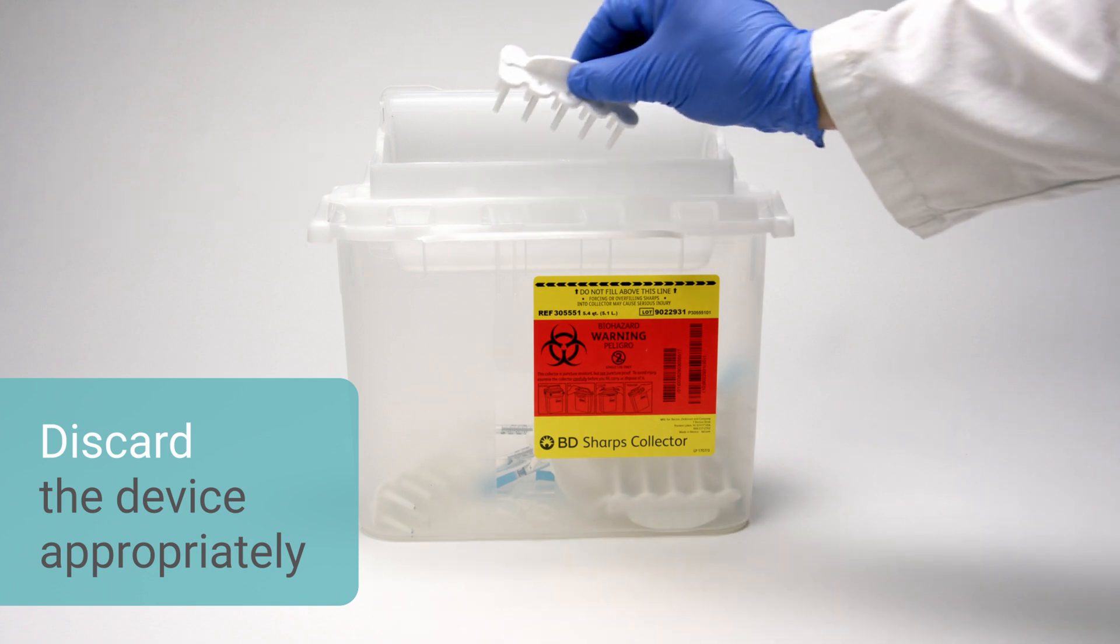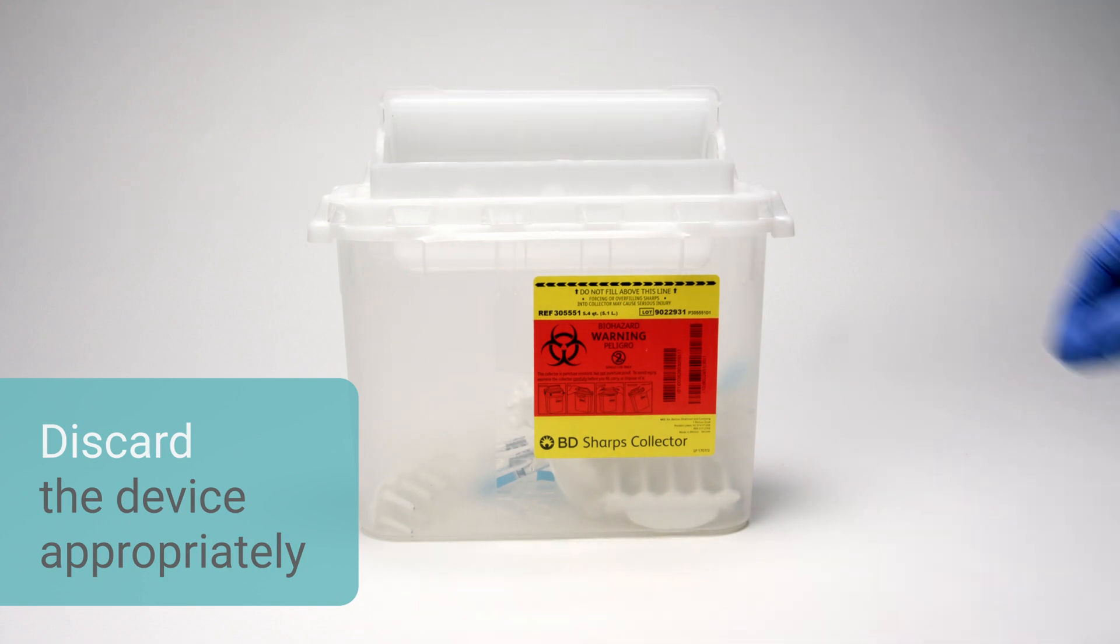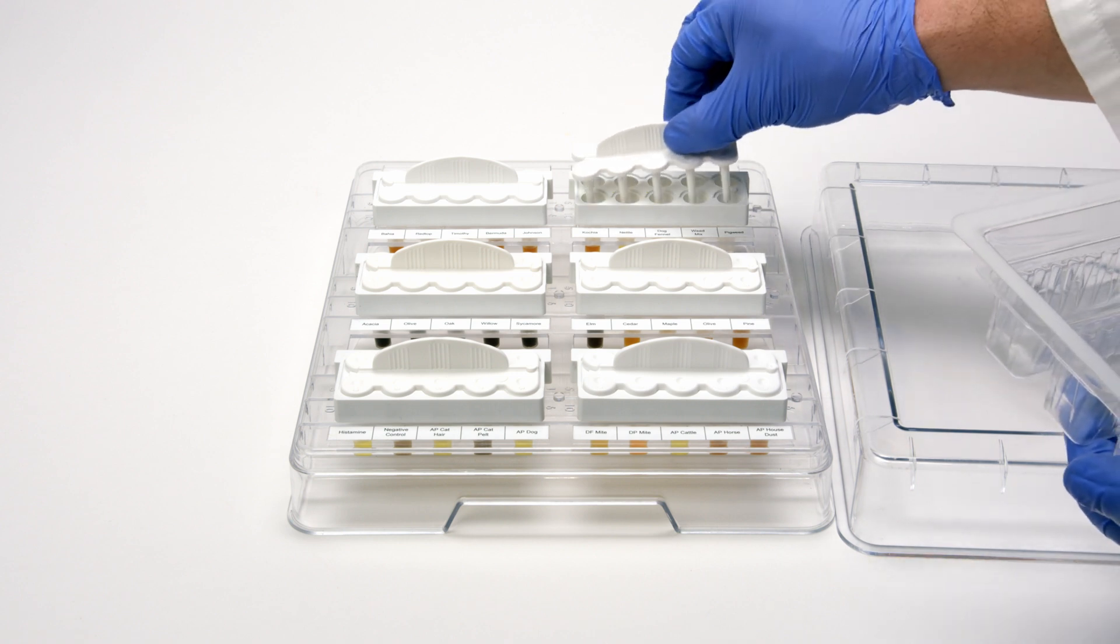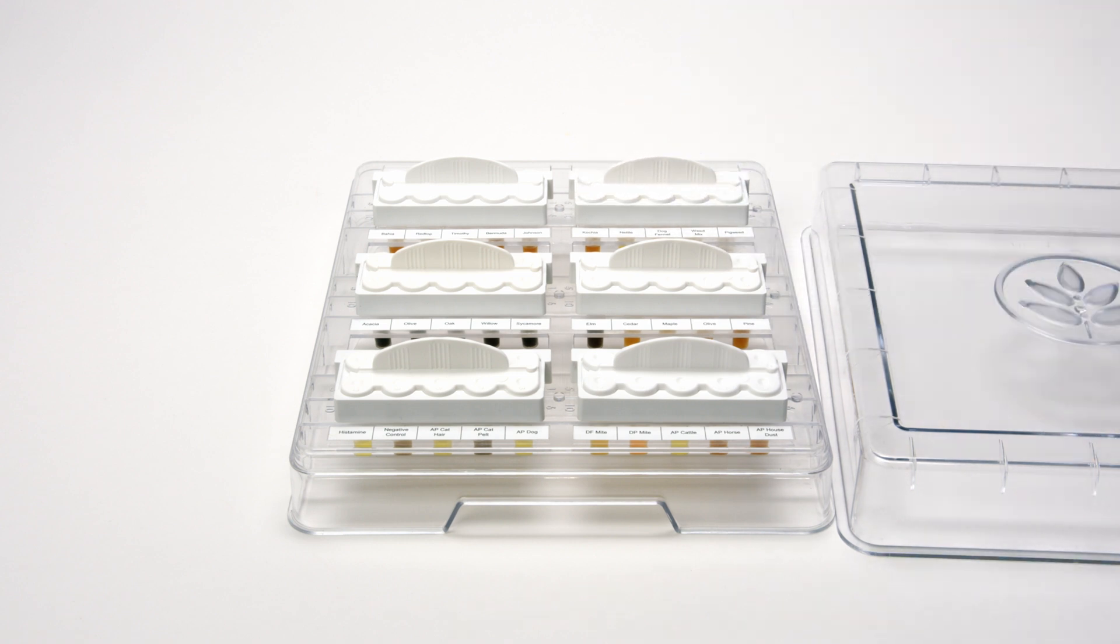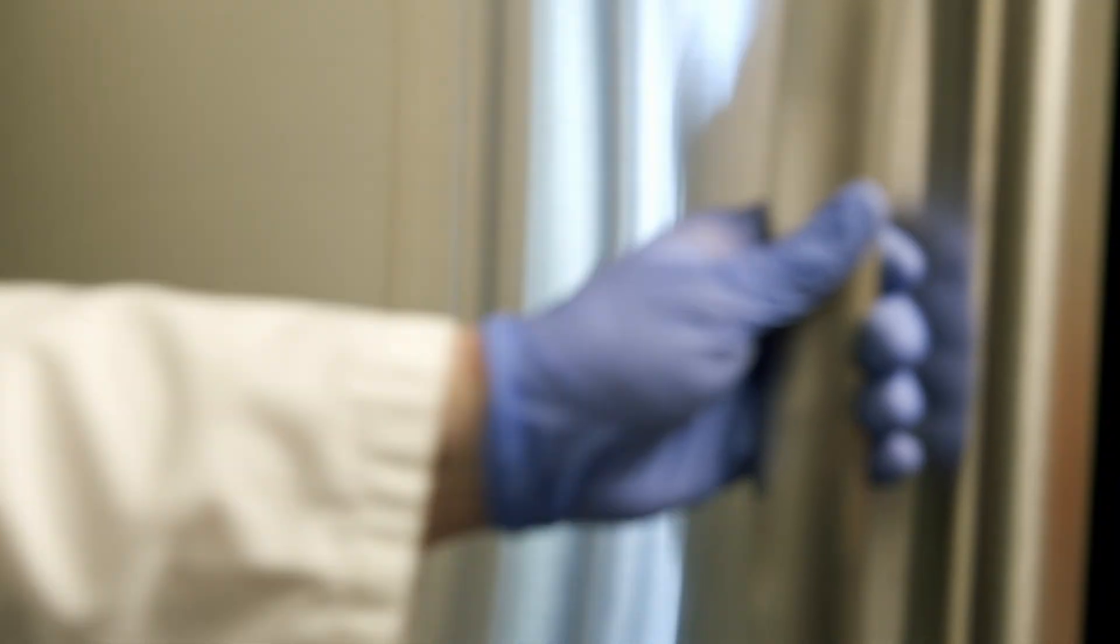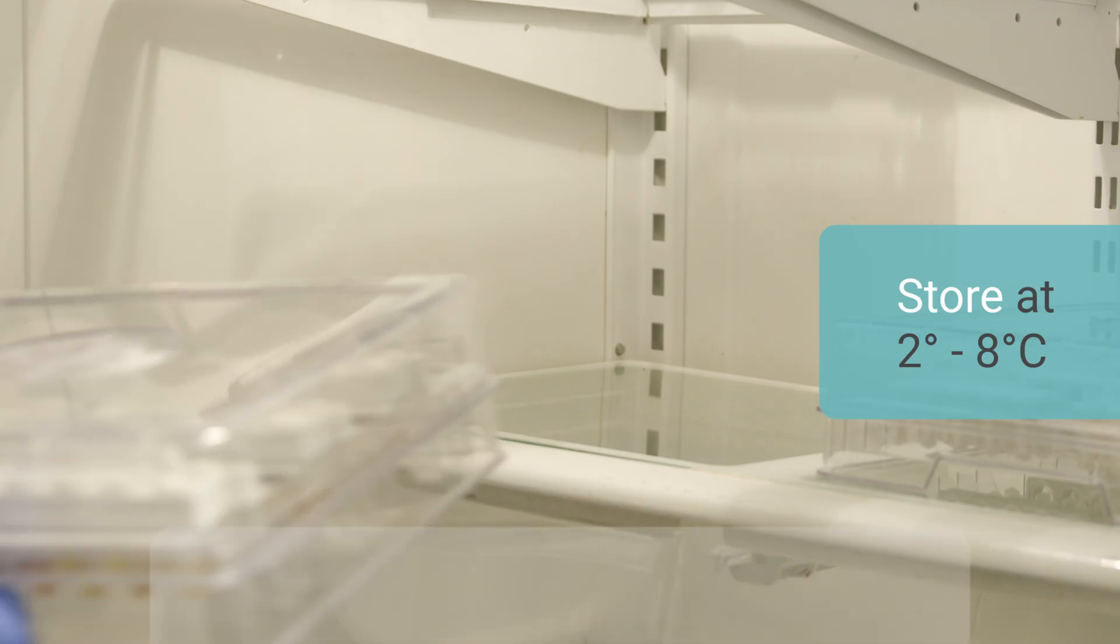Discard the Comforten testing device appropriately. Once a patient's test session has been completed, place new Comforten or Quintip devices in the filled extract tray. Cover and store at 2 to 8 degrees Celsius until the next test session.